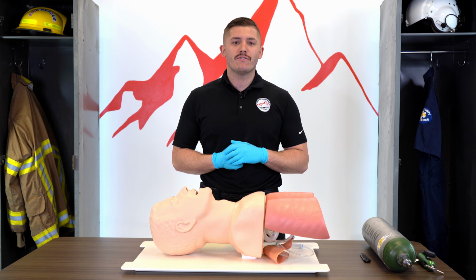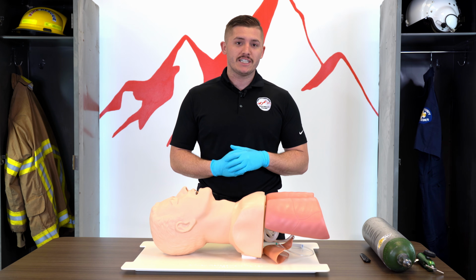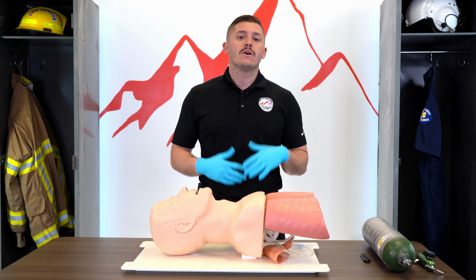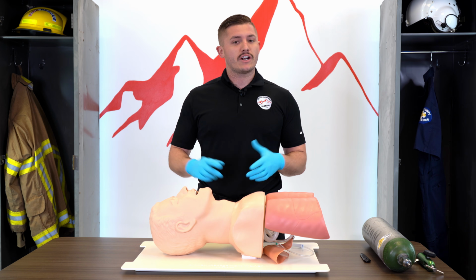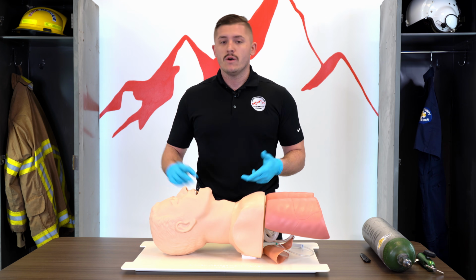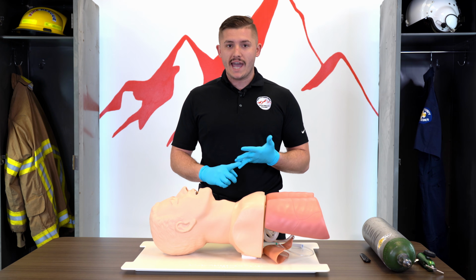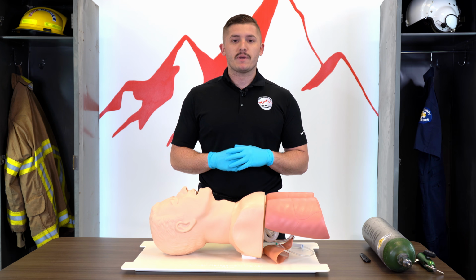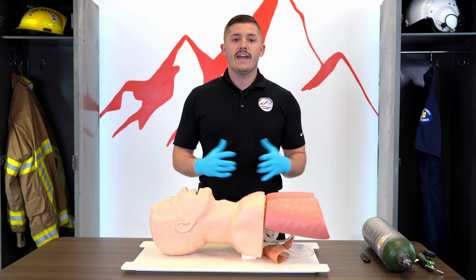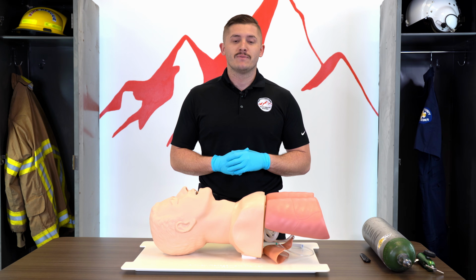Today we're going to be going over BLS airway management and how you could assist with some ALS airway management techniques as well. To get started, we'll talk about positioning the airway, suctioning, airway adjuncts, various oxygen delivery devices, CPAP, and then we'll start getting into our ALS airway management. So let's get to it.